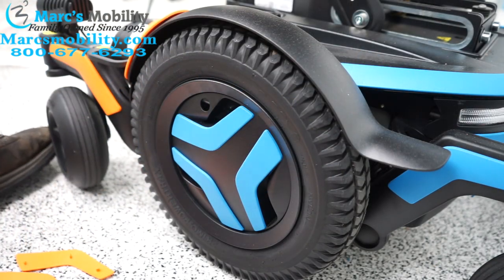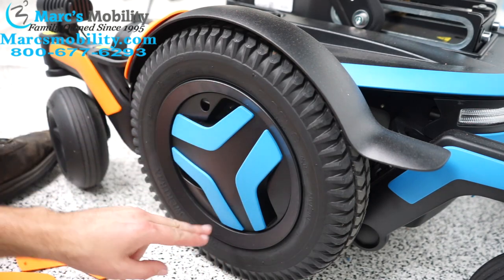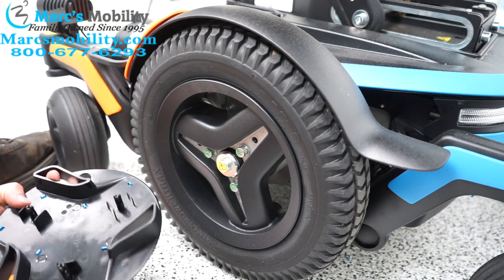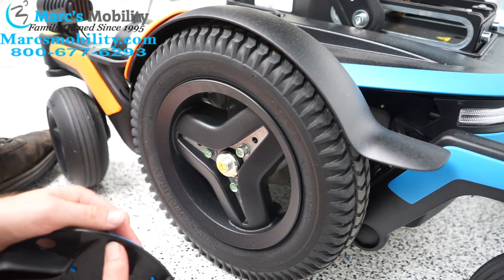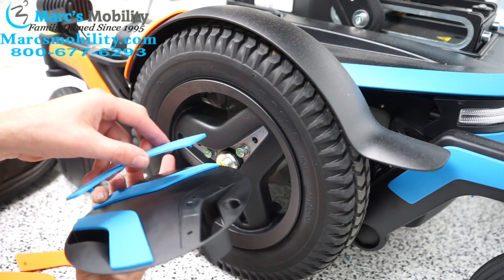Next I'm going to start on the wheel. The easiest way to get these blue shrouds off is to kind of pull this whole assembly out. You just want to reach your fingers in — it fits snug in there and it should just pop out. They're being secured by these blue tabs in the back, so I like to kind of push these tabs down or in a little bit and also pull from the other side.